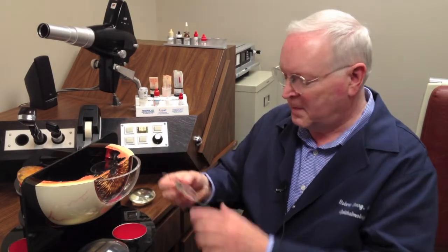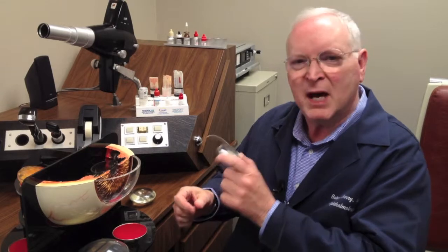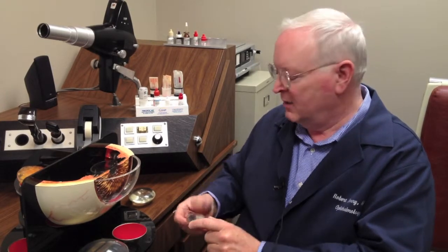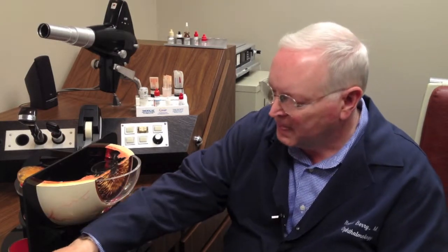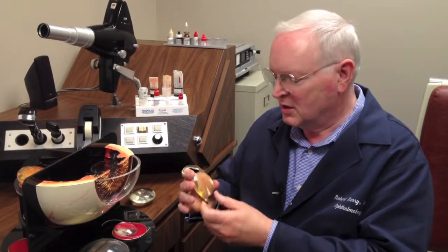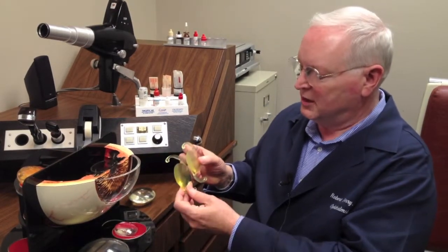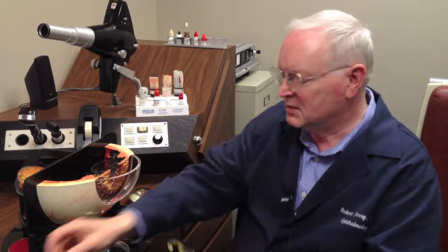This lens is a monofocal lens. It brings light to one focus, one spot. You can also have a lens that has astigmatism correction, shaped just the same. Here's a monofocal lens in this model, and there's a toric lens. A toric lens corrects astigmatism.